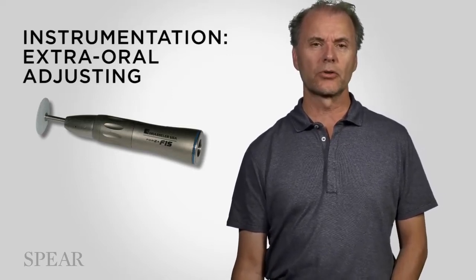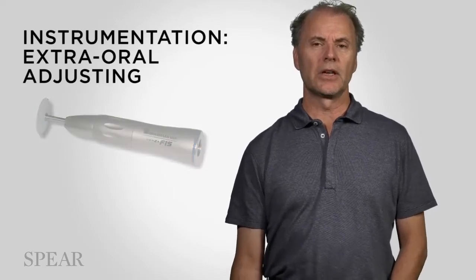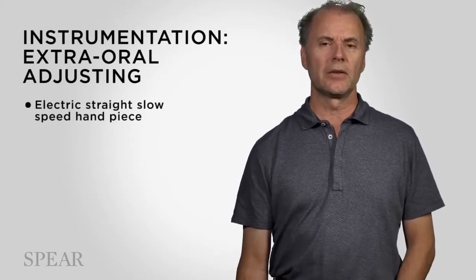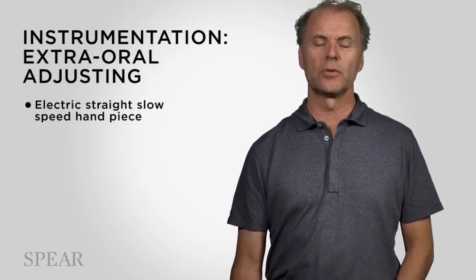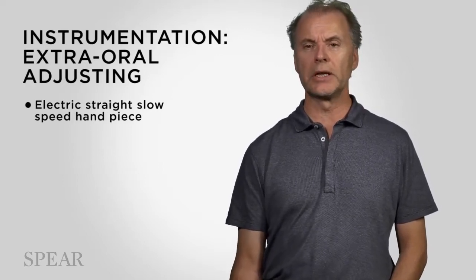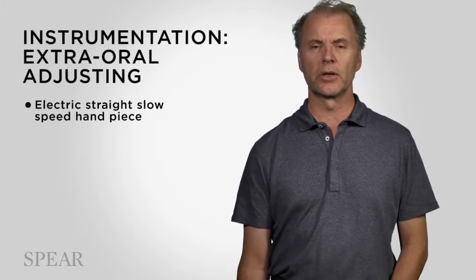So, the power of the handpiece is critical. It's a slow speed, and my recommendation will be for an electric handpiece to maintain the torque at slow speed. That's where the efficiency will come in.